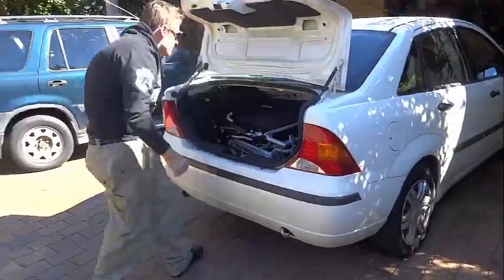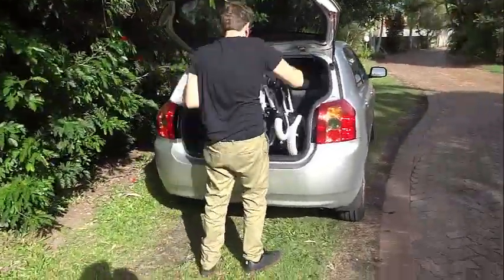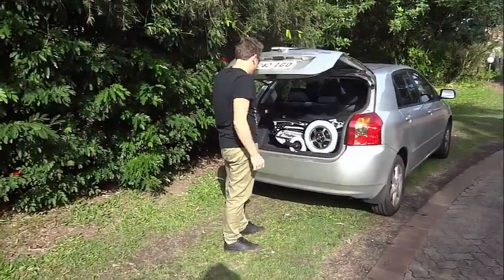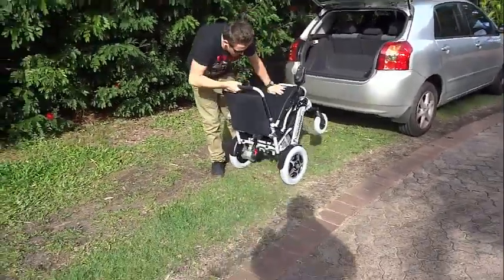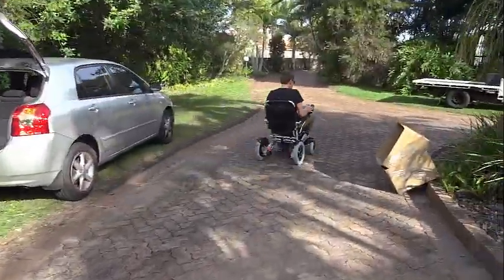You have to choose in the cart whether you want a factory fitted Big Easy quick detach kit — if you have a ramp or lift it's obviously not required unless you want to travel. Please bear in mind that all these wheelchairs ship to your door fully assembled and all have an international swap-out warranty of 3 years on the frame and motors, 12 months on the batteries and controller, and 3 months on consumables.